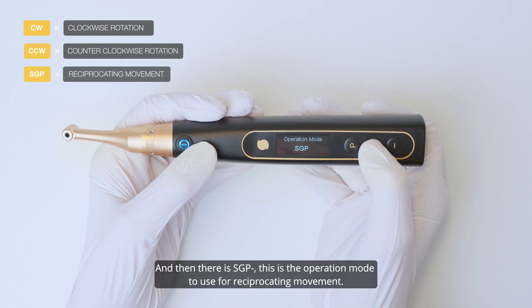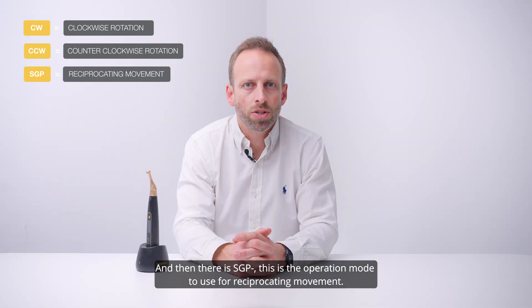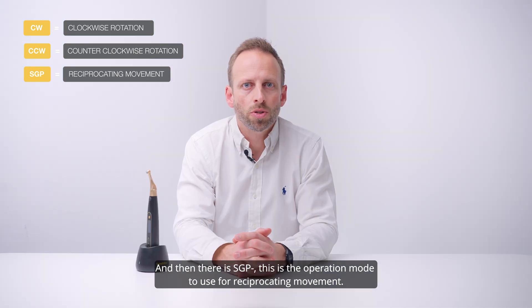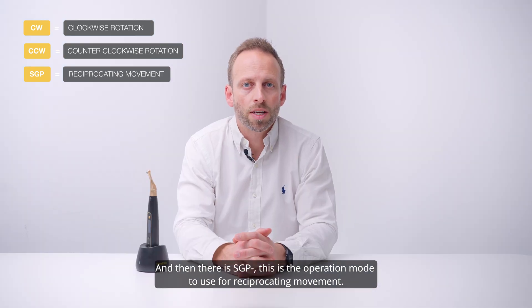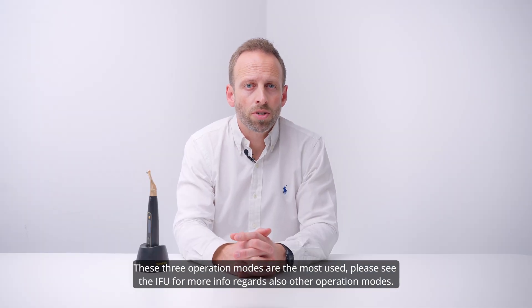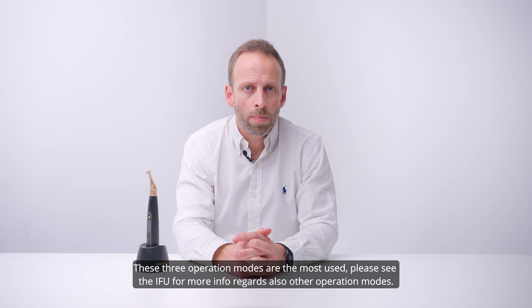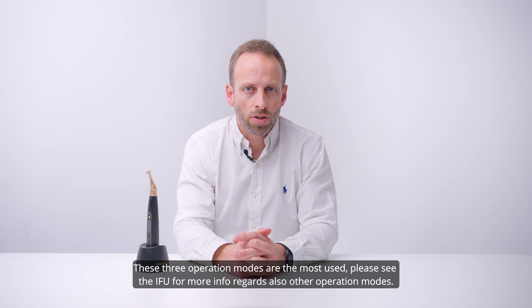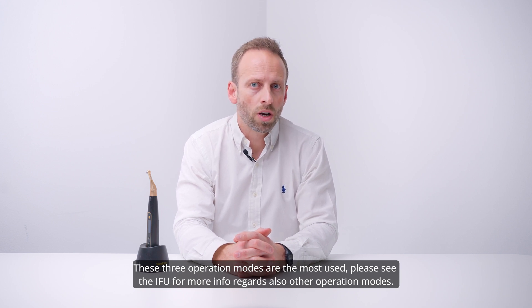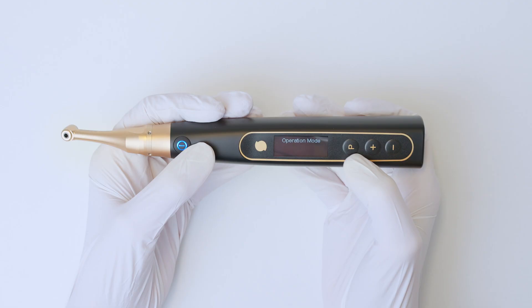And then there is SGP. This is the operation mode to use for the reciprocating movement. These three operation modes are the most used. Please see the instructions for use for more information regarding other operation modes.